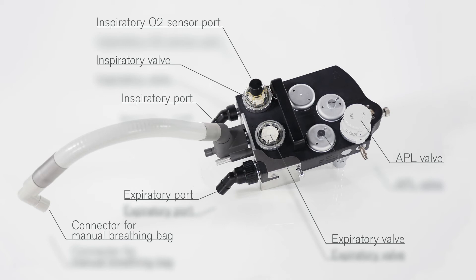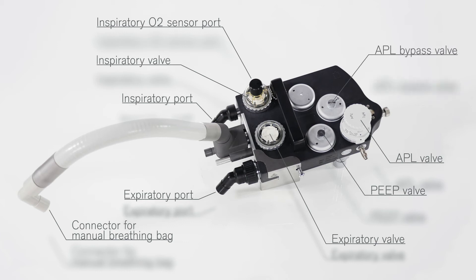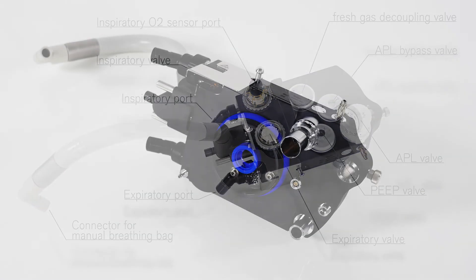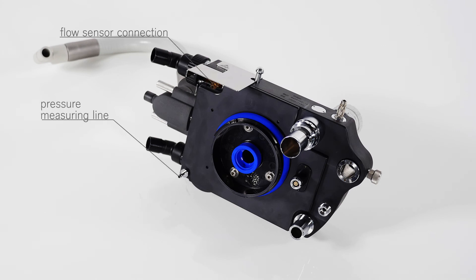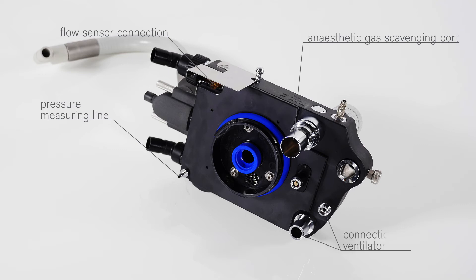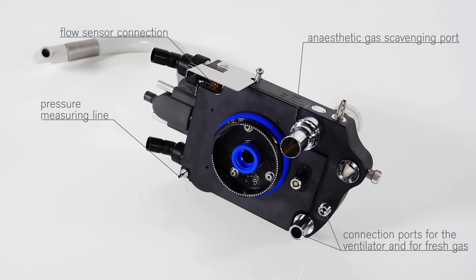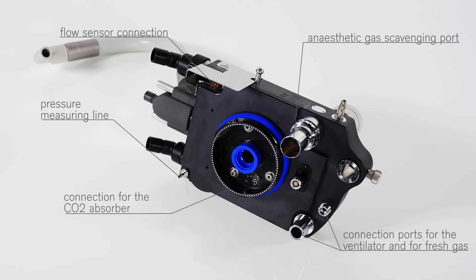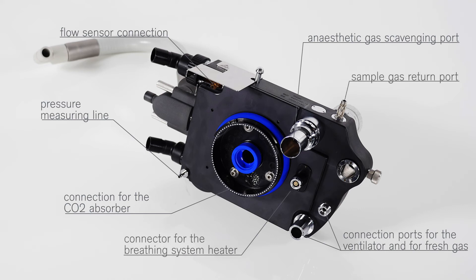You also find the connection ports for the PEEP PMAX valve, the APL bypass valve, and the fresh gas decoupling valve. On the bottom side, you can see the flow sensor connection, the pressure measuring line, the anaesthetic gas scavenging port, and the connection ports for the ventilator and fresh gas hoses, as well as the connection for the CO2 absorber. Furthermore, you may find the connector for the optional breathing system heater and the port for the sample gas return.